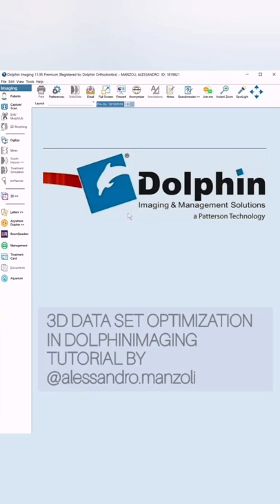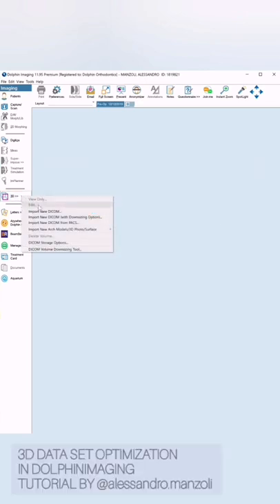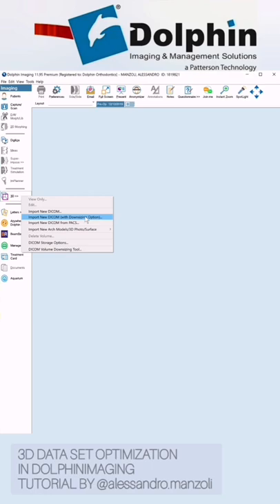So let's start from the beginning. I have a patient and I have already created a time point here. So we go to 3D, and instead of using 'Import New DICOM', we will go to this option here: 'Import New DICOM with Downsizing Option'. Basically the downsizing option lets you change the voxel size when you import a DICOM, so we can make the voxel size a little bit bigger. This will reduce the resolution and reduce the size of the DICOM.